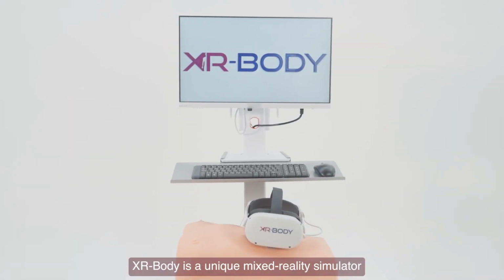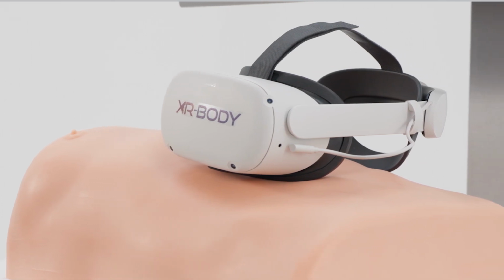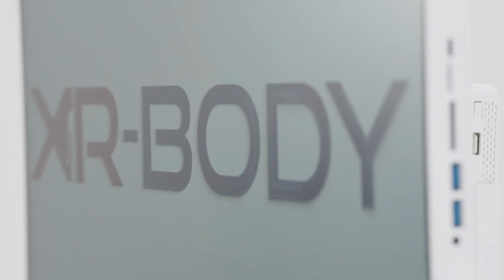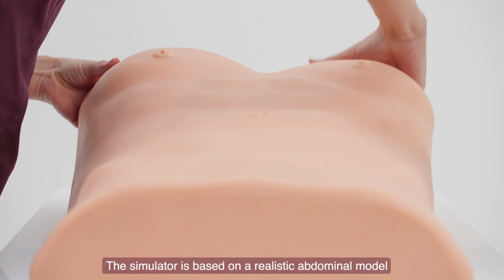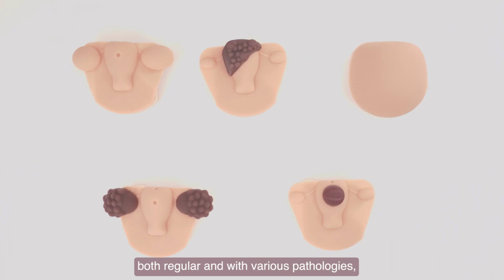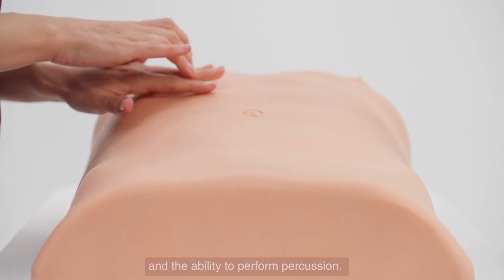XR Body is a unique mixed reality simulator that enables the physical examination of a virtual patient. It is a hybrid technology with no analogs. The simulator is based on a realistic abdominal model with palpable bony landmarks, soft elastic skin, a set of internal organs, both regular and with various pathologies, and the ability to perform percussion.